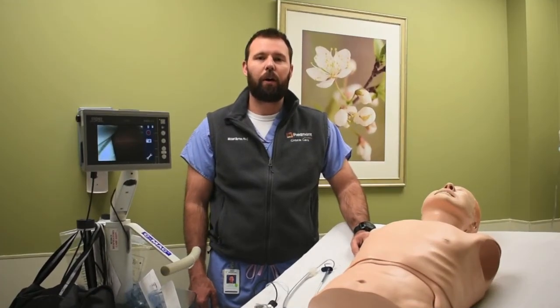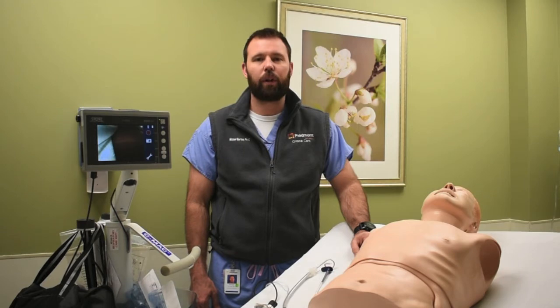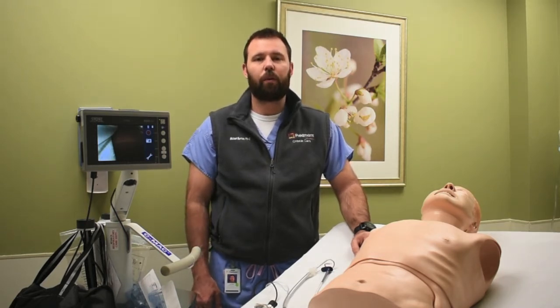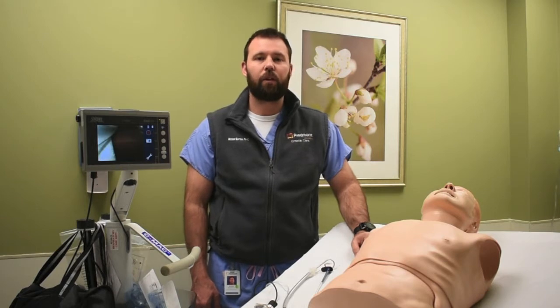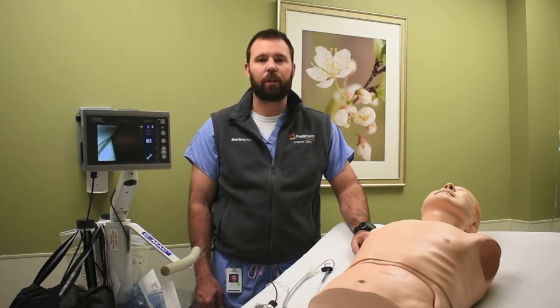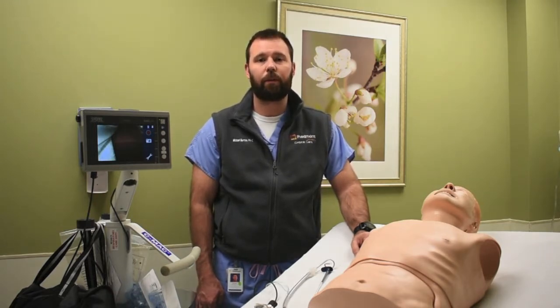Today we're going to talk about how to intubate using a video laryngoscope. Now, some of you may be very familiar with the traditional method of intubating using direct laryngoscopy, or perhaps you're new to intubating and VL will be the technique that you learn first. Regardless of where you are in your intubating career, it's important to know some fundamental differences between the technique for DL and VL so that you can have better first pass success and minimize complications.